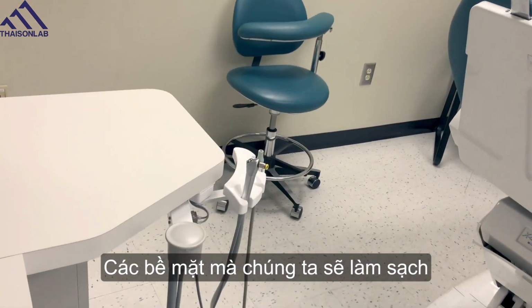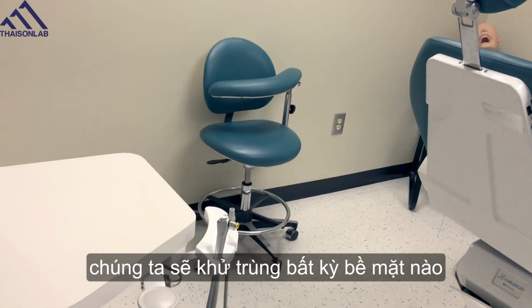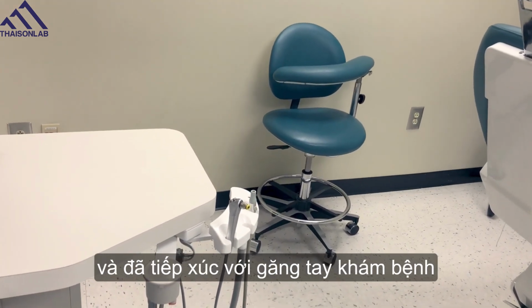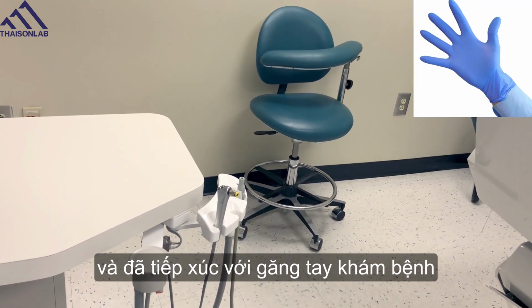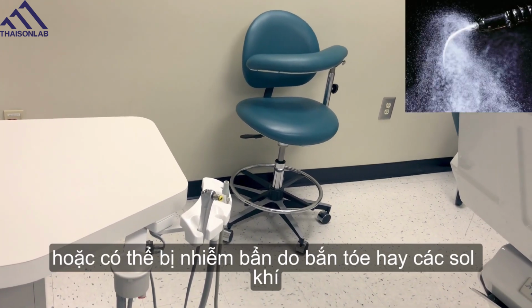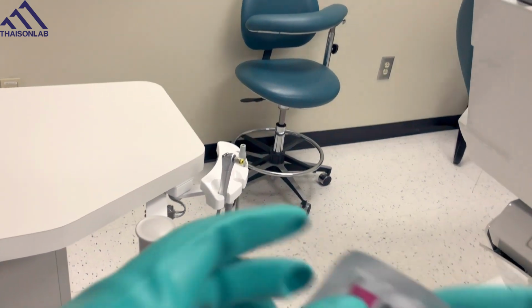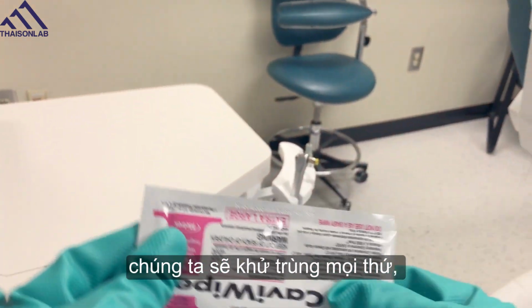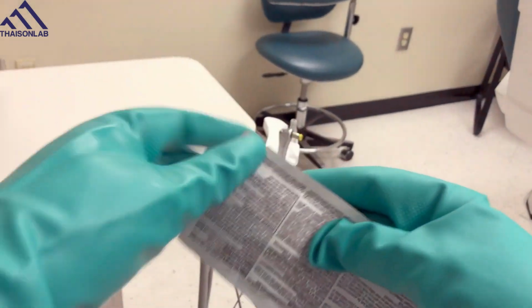The surfaces that we will clean. If it's between patients, we are going to disinfect any surface that was not covered with a barrier and came in contact with either our contaminated exam gloves or may have been contaminated by spatter or aerosols. If it's the end of the day, we're going to disinfect everything, even items that did have barriers on them.